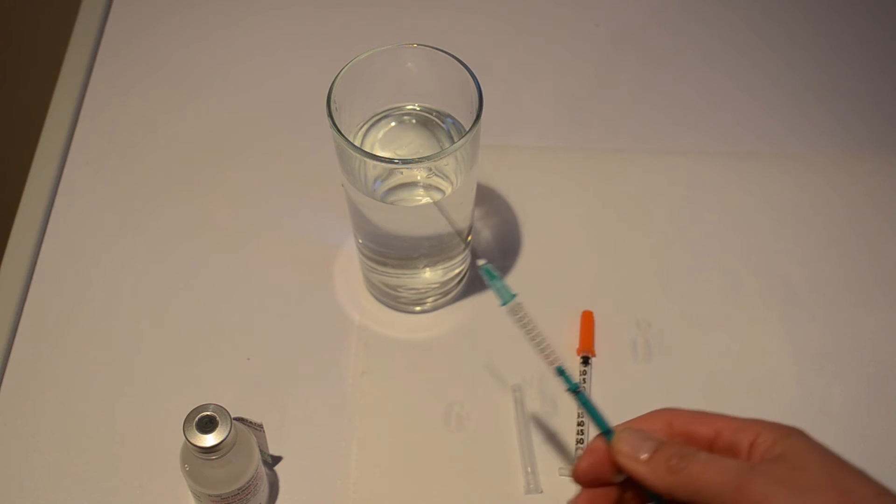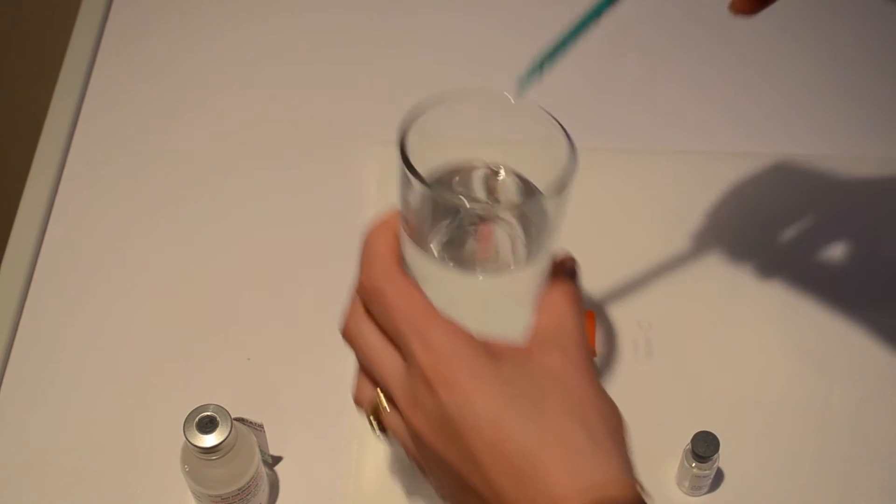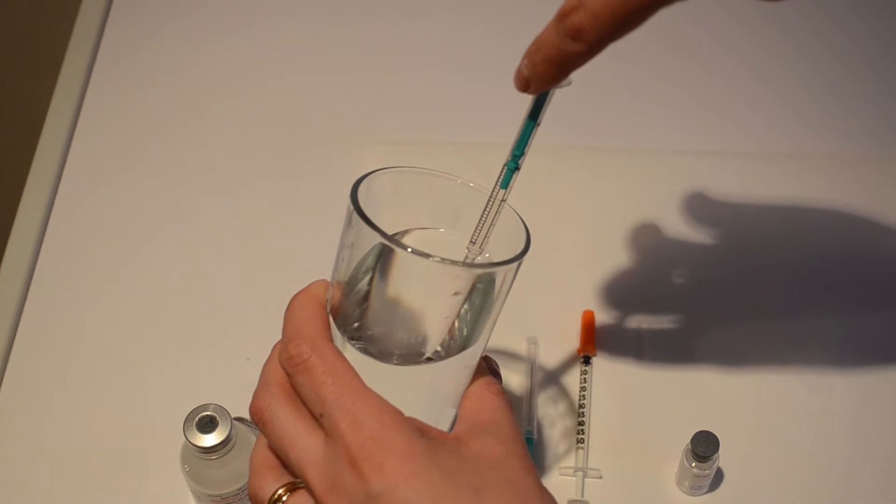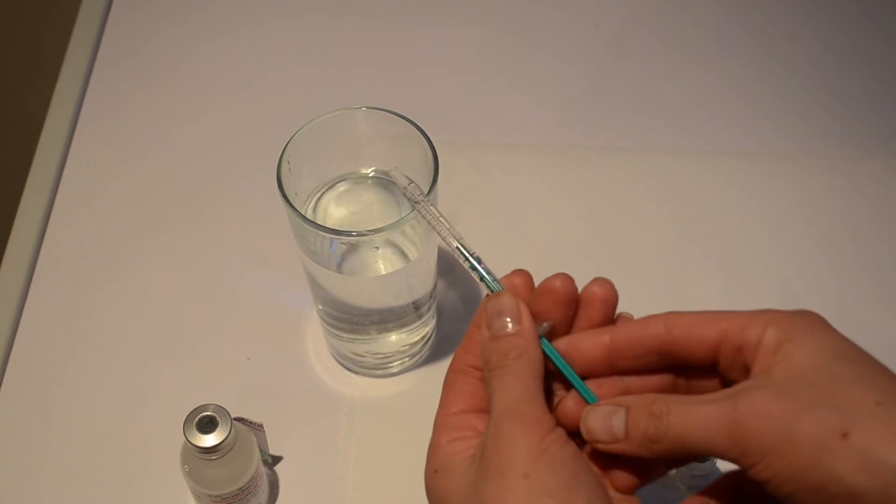Okay so I've got 0.63 ml. I want you to use your glass of water and imagine that you're drawing up 0.63 ml. So you can do that at home.